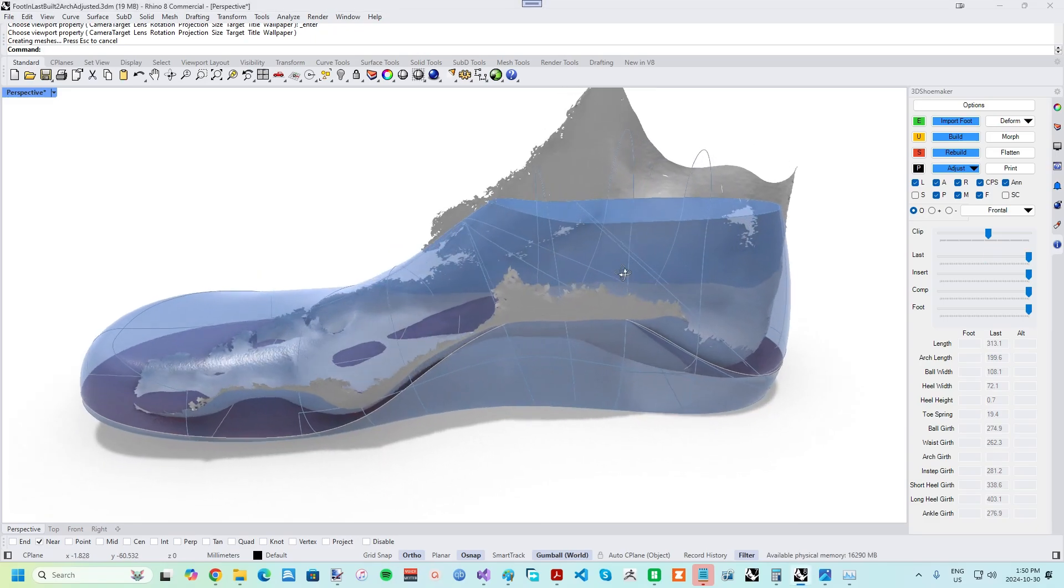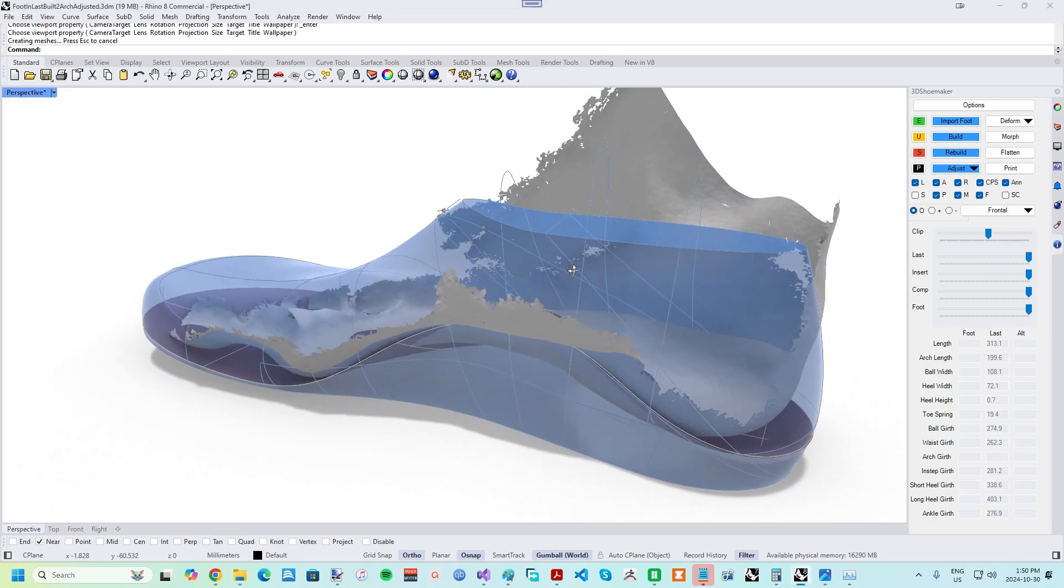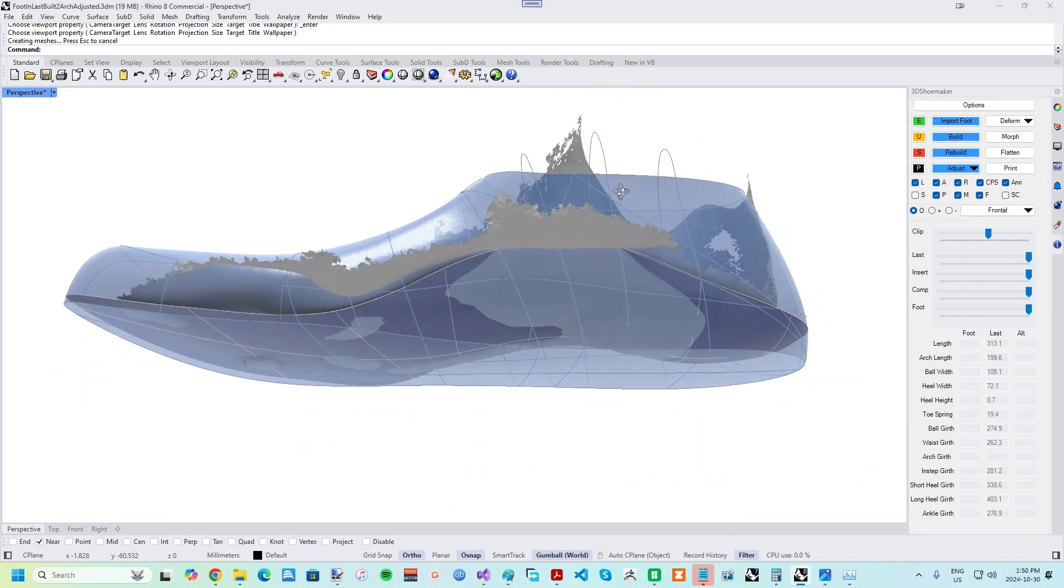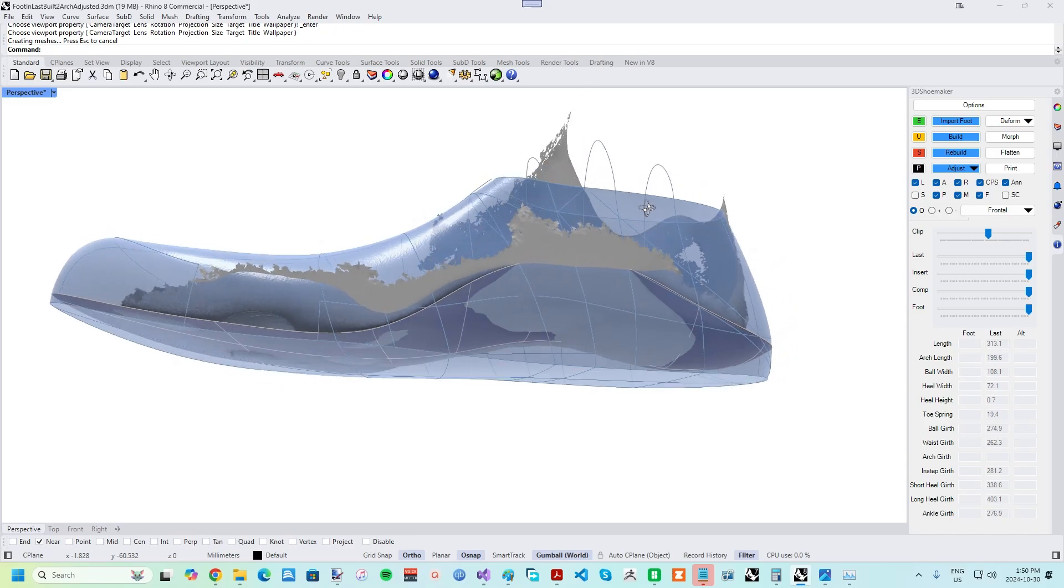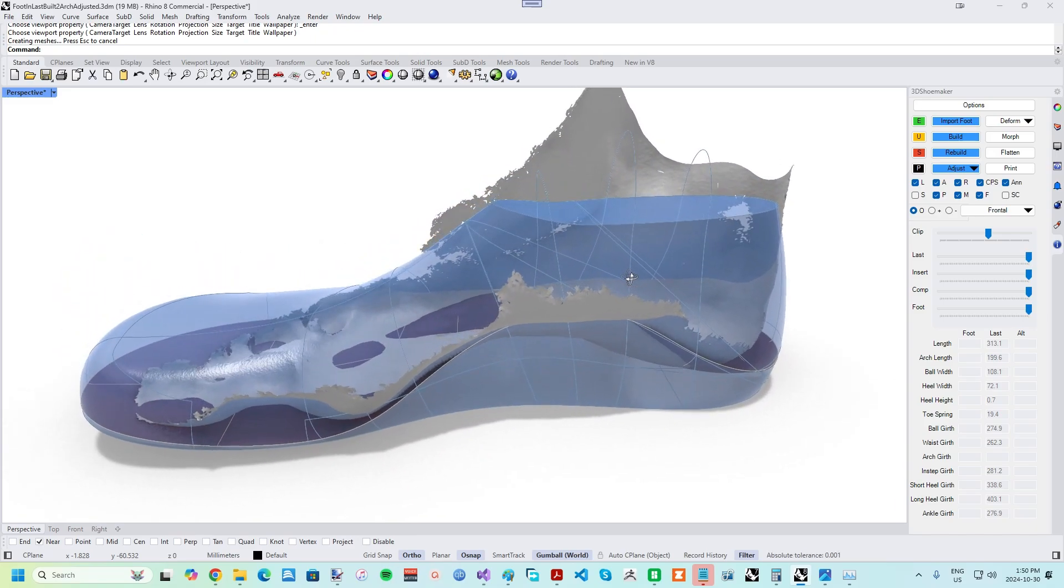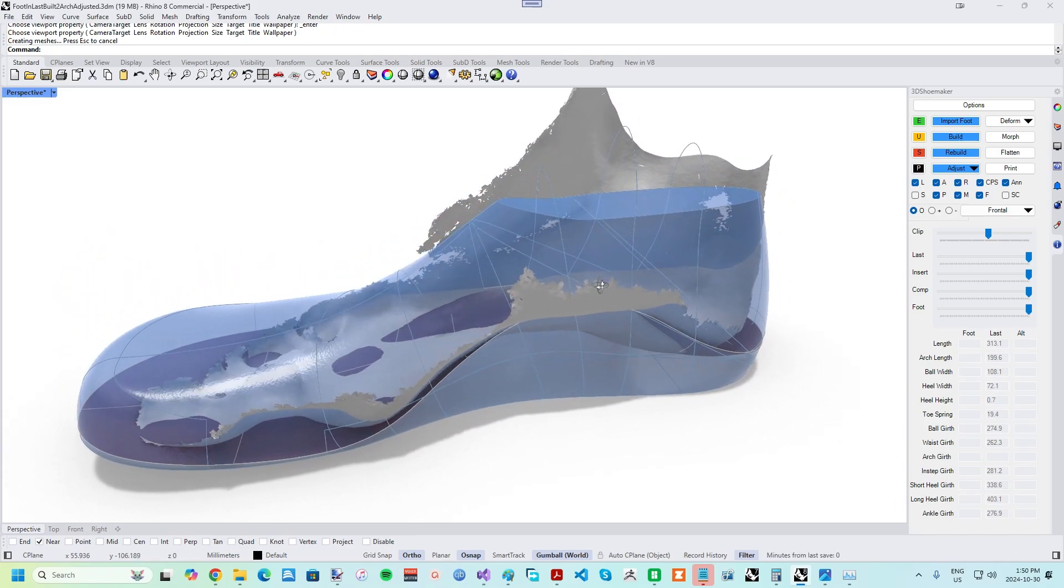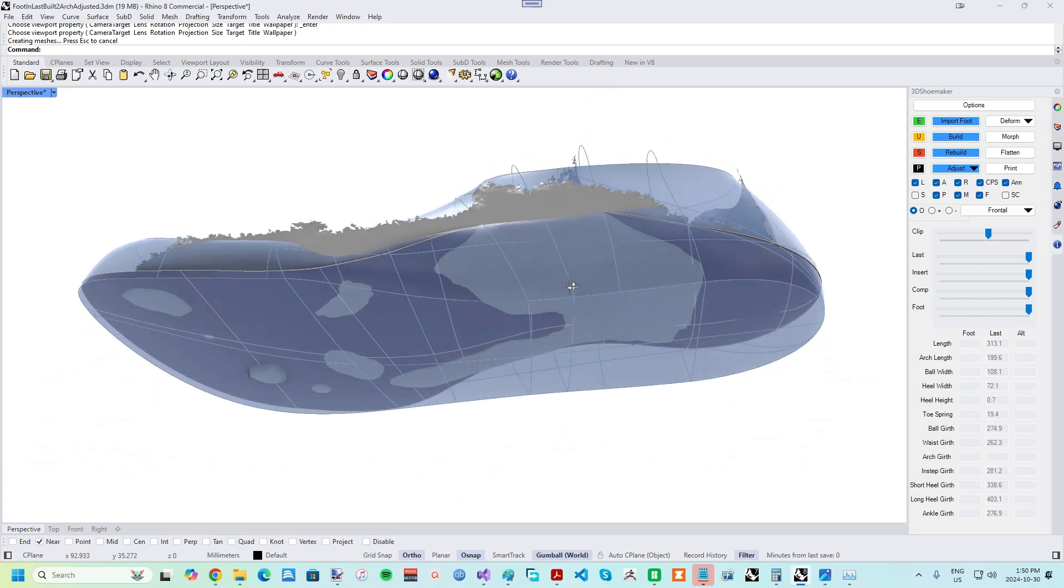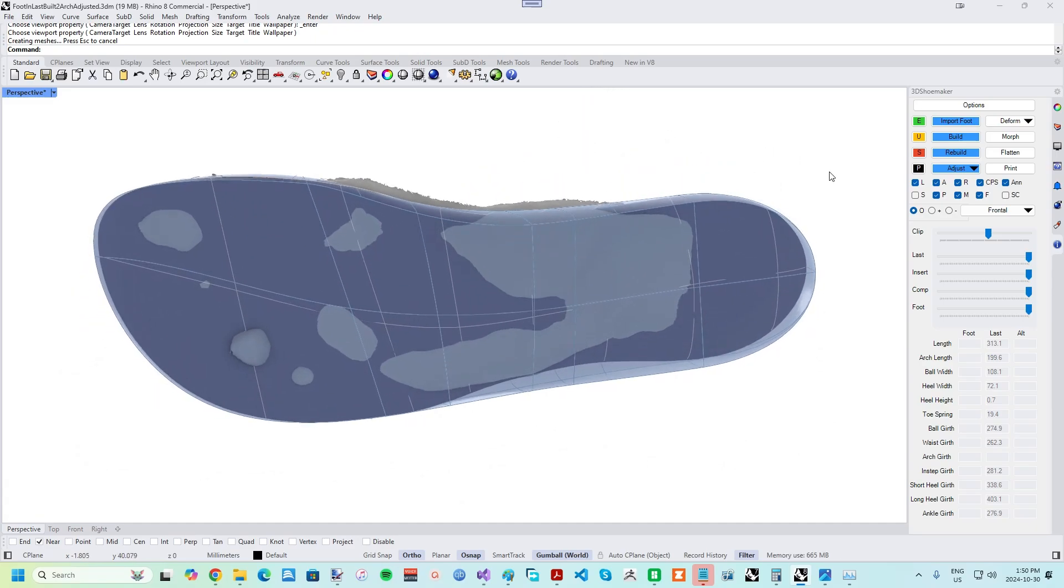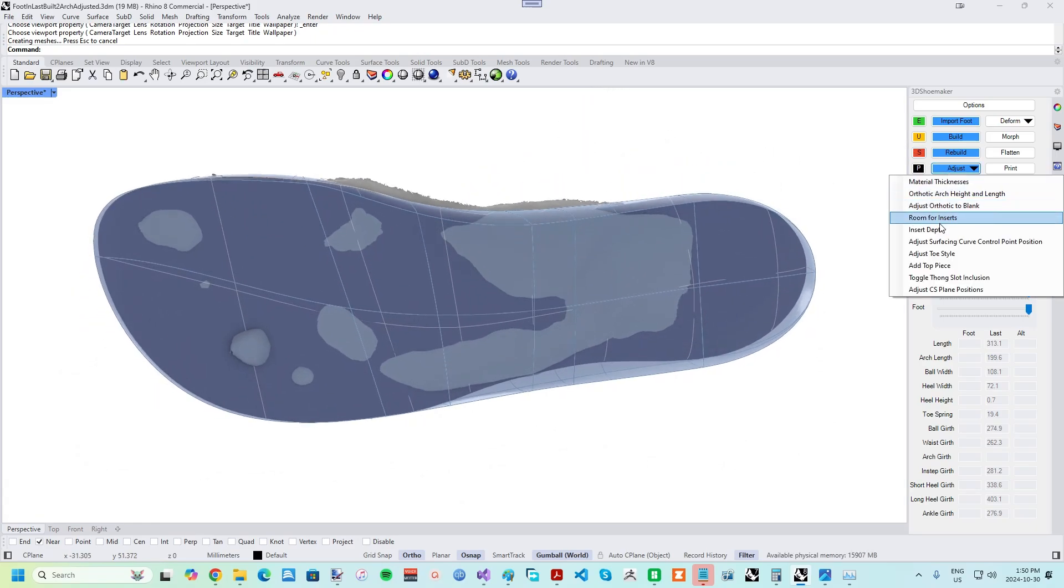The orthotic design so far should be an approximate match for the final intended orthotic. Before moving on, material has to be added to the central part of the orthotic to create a kind of blank for vacuum forming. This blank, rather than a flat table, becomes the limit for how deep the vacuum formed orthotic can go.